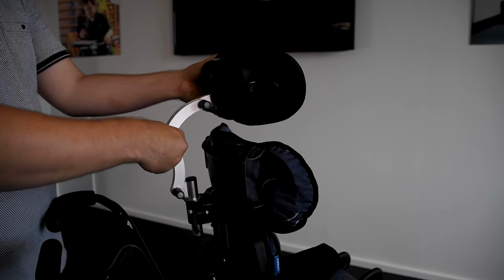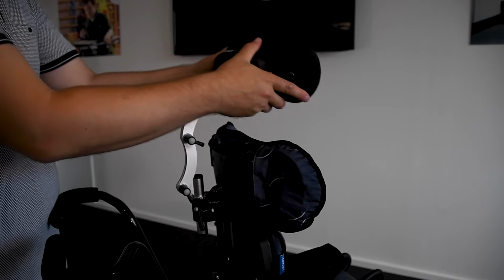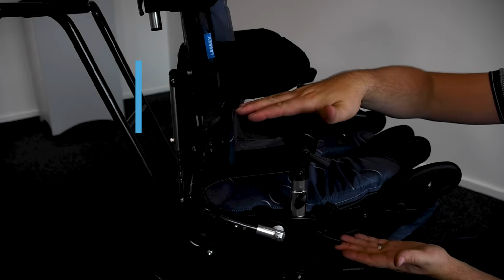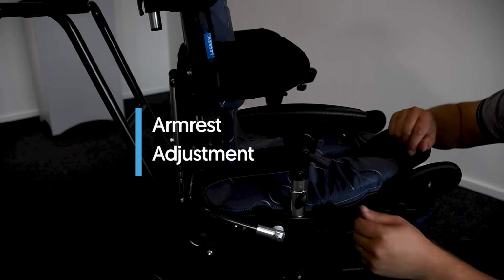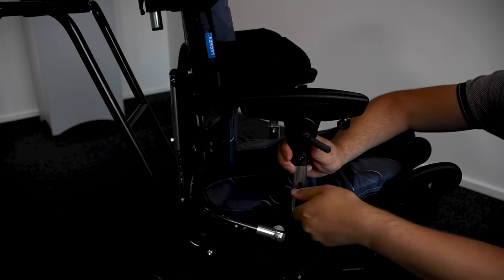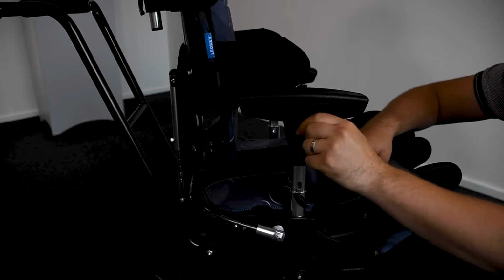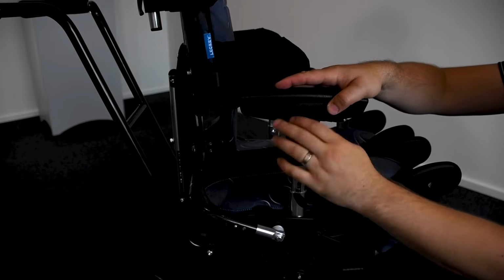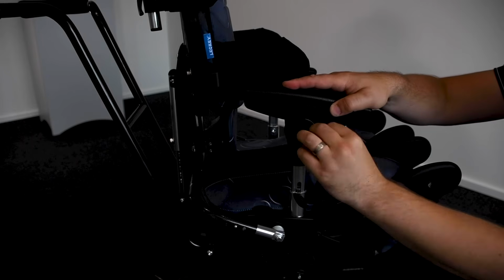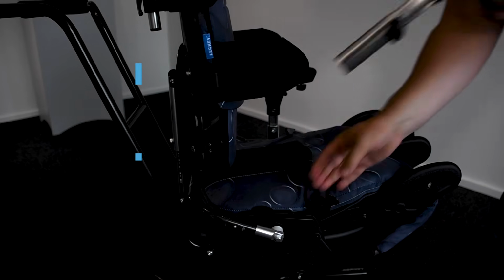To adjust the height, depth and angle of the contoured headrest, loosen the hand knobs, and when set to the desired position, retighten the knobs. Armrest adjustment. To adjust the height of the armrest, loosen the hand knob, set to the desired height and retighten. To adjust the angle, rotate the ratchet handle until the desired position has been achieved. To remove the armrest completely, loosen the ratchet handle, press the popper, and lift the armrest.